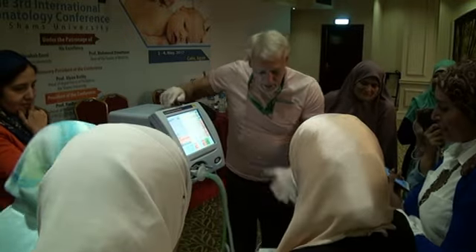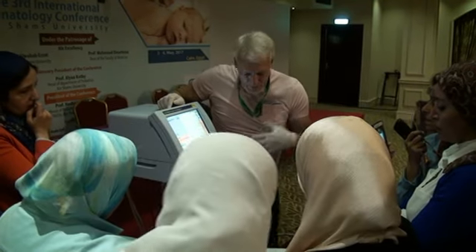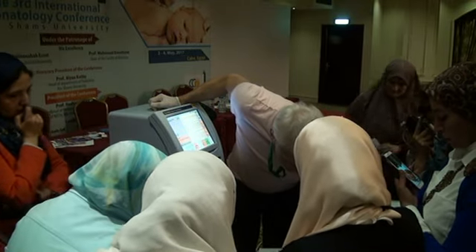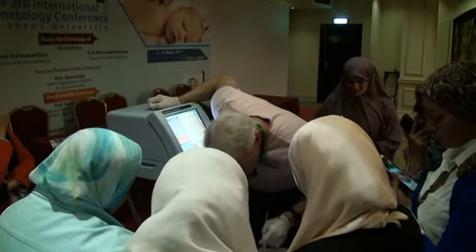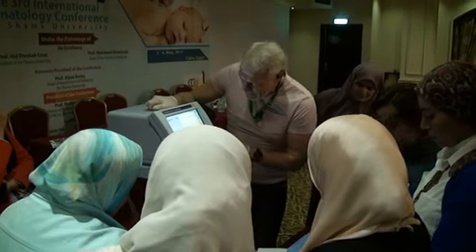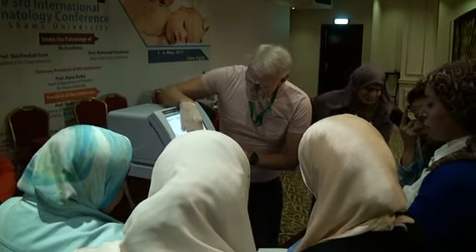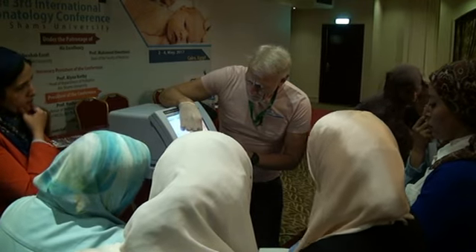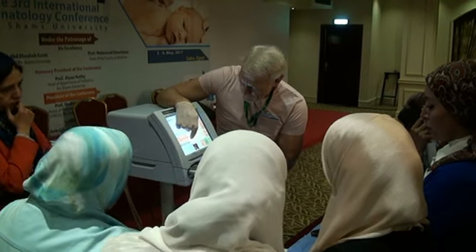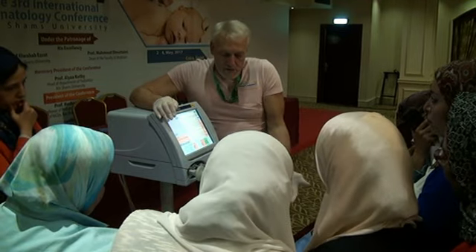So let's just pop this away. Let's go crazy. Let's just really inflate this lung up to 30 or so, and see if I can get rid of any of these red marks. I'm not sure I will. The lung is normally a little bit underinflated. So I've got a mean airway pressure, and I said I was going to have it about 24. So I've recruited, I've come down to 24.